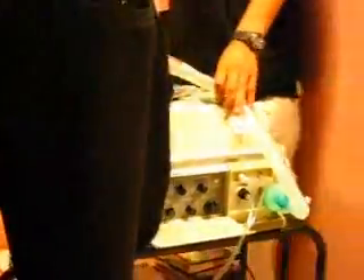So plug it in the wall. Once he plugs it in the wall, it's going to go to the AC. You can disconnect the pump for a little bit. Can you see the green light on? So once you come to the machine, you want to make sure it's on the AC green light, because if it's not, it's going to be on the external. The reason we don't have external right now is because — let me put the battery in there. So it's on the AC. See?